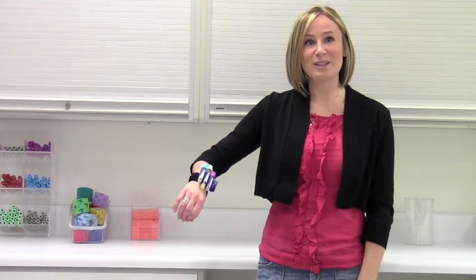Now, no matter where you go to draw, you'll always have a safe place to put your tubes and they'll always be in full view.